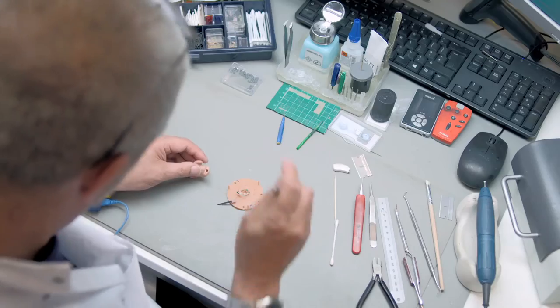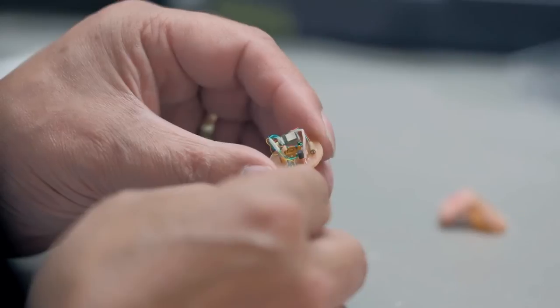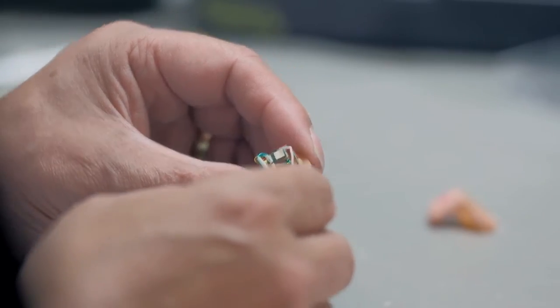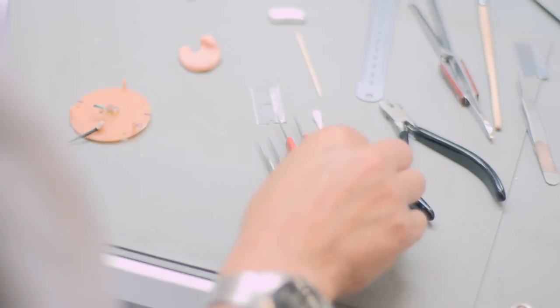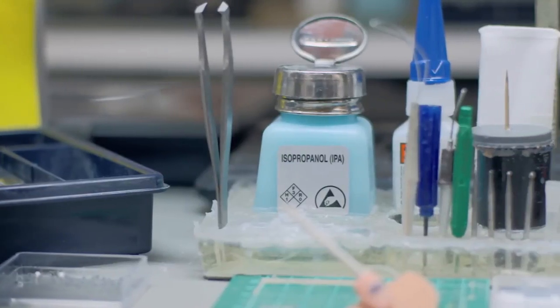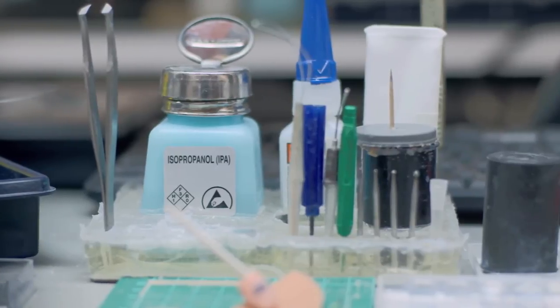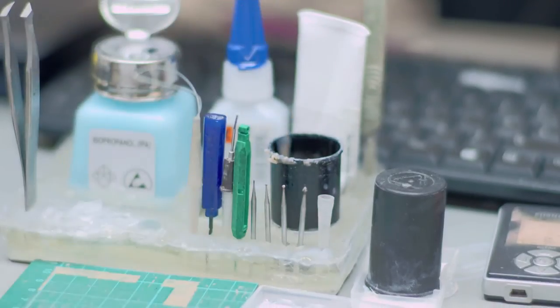I'm Ray Ewan. Closers position all the components in the hearing aid to make one whole hearing aid. I use ITEs myself. There were so many things that I didn't know that made a noise and all of a sudden with the hearing aids I can hear it.